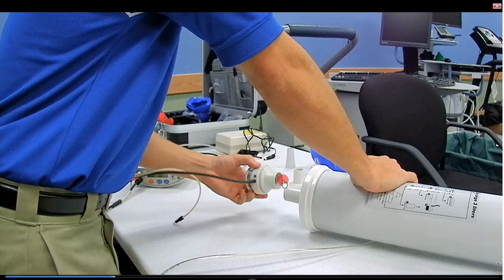Then once you're finished, you're going to slide the turbine onto the syringe adapter.